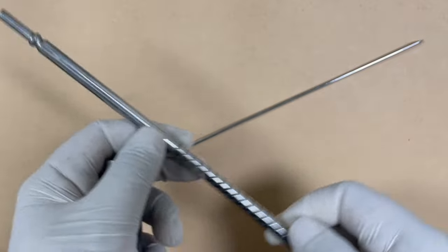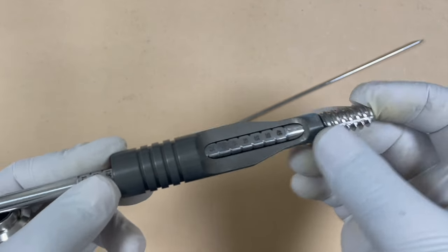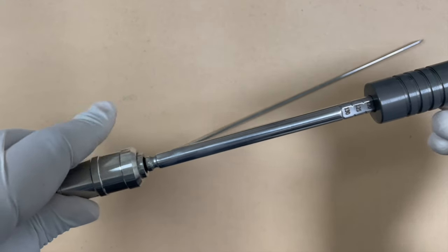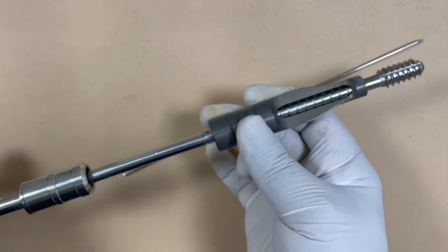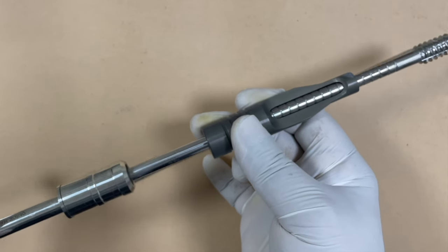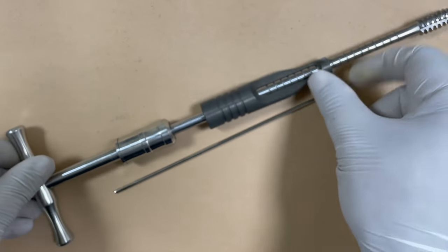For attaching the tap you need a T-handle. Insert the tap inside the sleeve first, then attach the T-handle which will lock the tap. The tap part remains inside the bone, and the turns you perform push the tap inside the bone and create a thread track for the lag screw. This is the complete assembly for tapping.